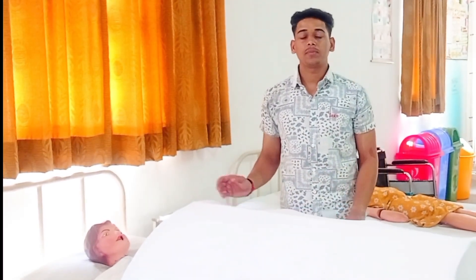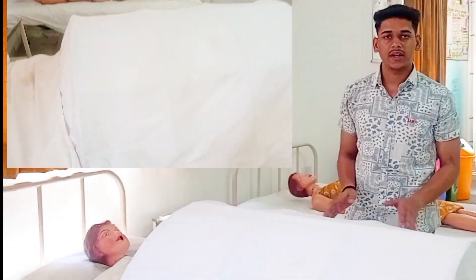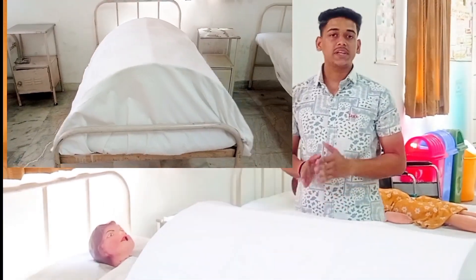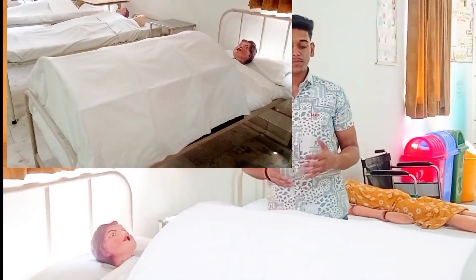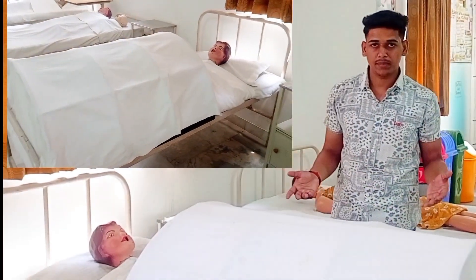Hey everyone, welcome again to my YouTube channel. Today we discuss the burn bed. This is a very important type of bed. We all know that there are mainly eight types of beds in a hospital, and this is one of them — the burn bed — which is very important, and we have specific changes in this bed.